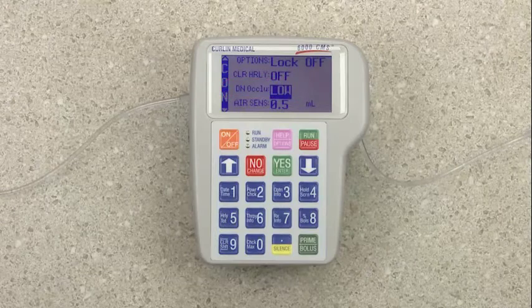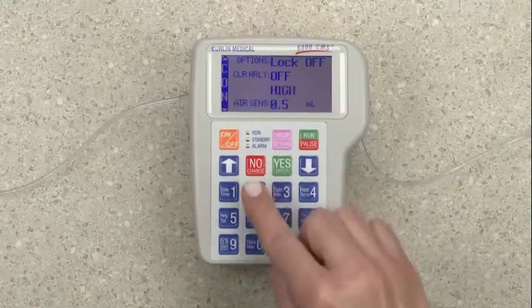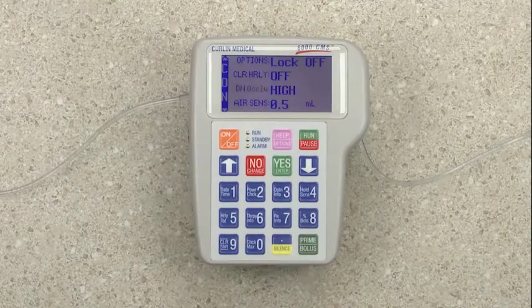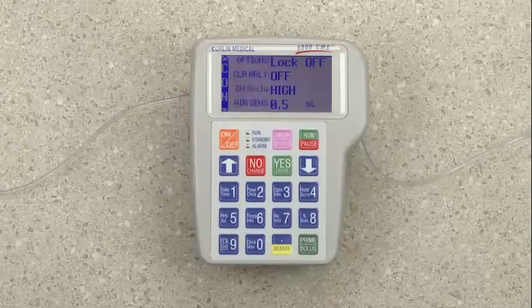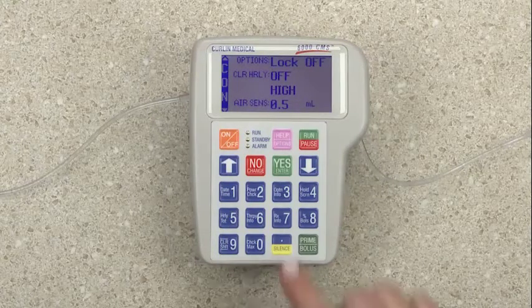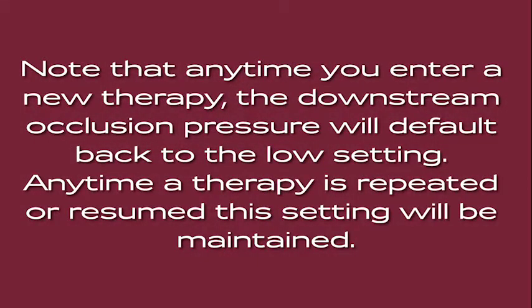Next is our downstream occlusion pressure. You can see that it is defaulted to low. Press No to change the setting to high. If the pump requires an access code, place the access code in and continue. The lock level would indicate if the access code is required for this feature. Press Yes to confirm the high setting. Note that any time you enter a new therapy, the downstream occlusion pressure will default back to the low setting. Anytime a therapy is repeated or resumed, this setting will be maintained.